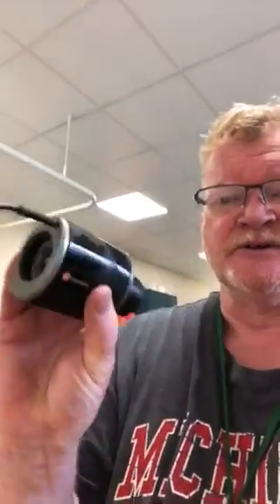You'll be familiar with the mouthpiece. Different occupational health nurses use different equipment, but one thing in common is that there will be a mouthpiece that looks a little bit like this, attached to some form of spirometer — could be a laptop, could be some smaller electronic type device.